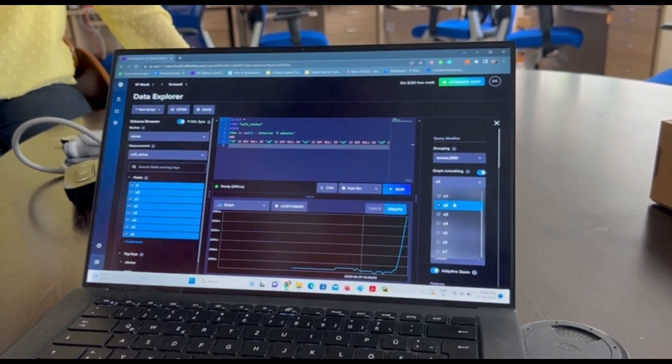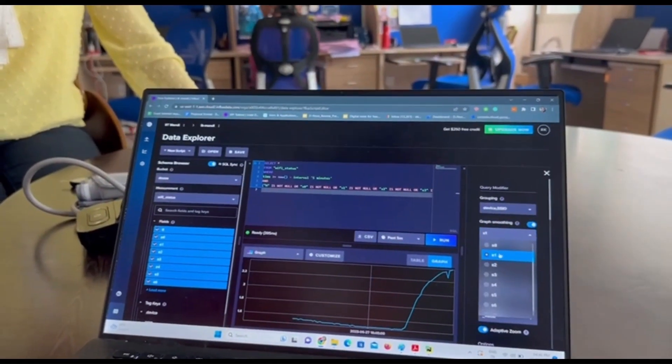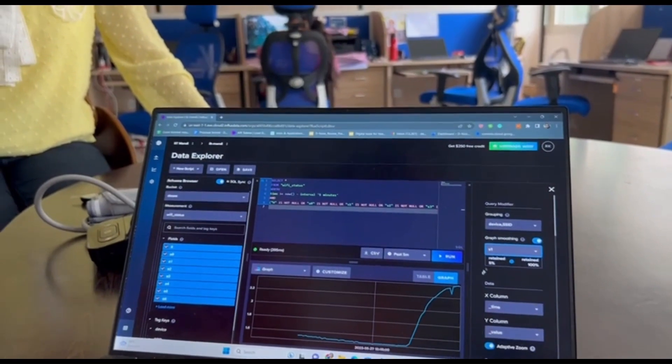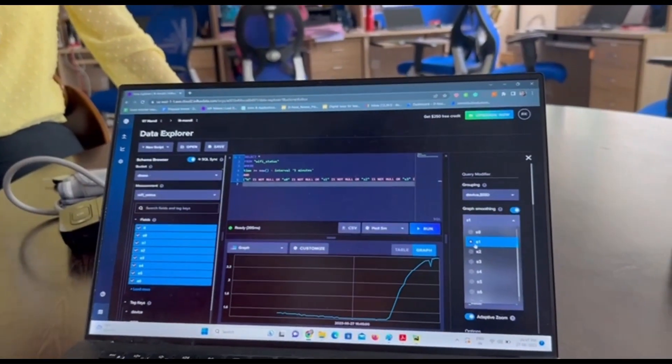Parallelly, the breath sample is slowly being diffused into the device. As you can observe, the readings have started becoming stable now at different maximum voltage values across different curves for different sensors based on their sensitivity.